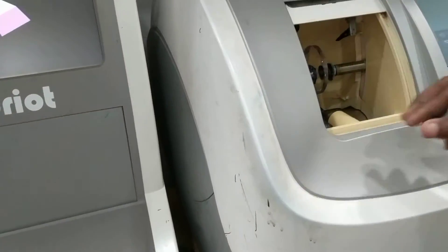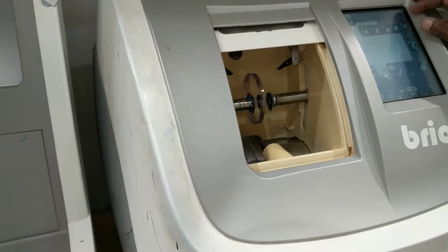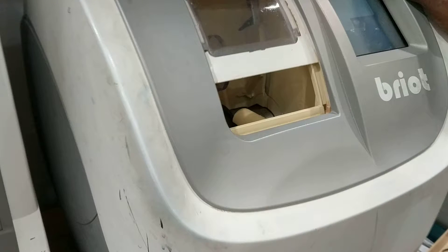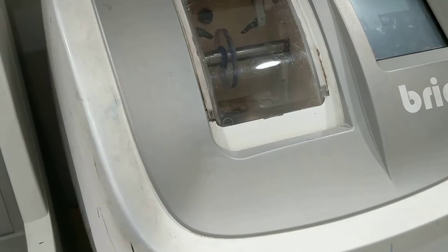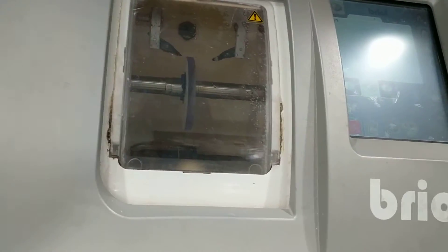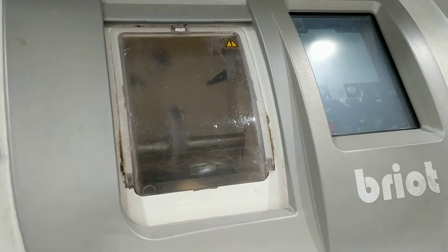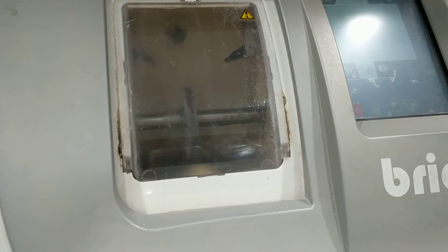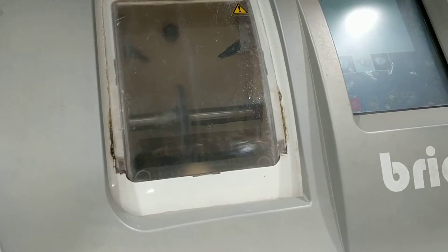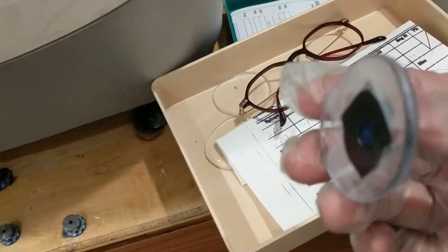Got the lenses, so this is the machine. This one is already finished, already cut — so that's how it looks. Look pretty thin.